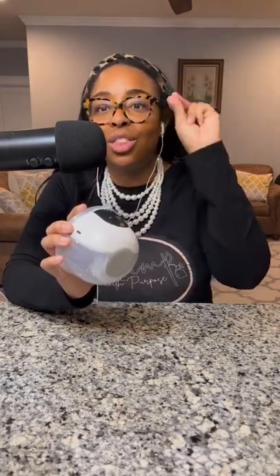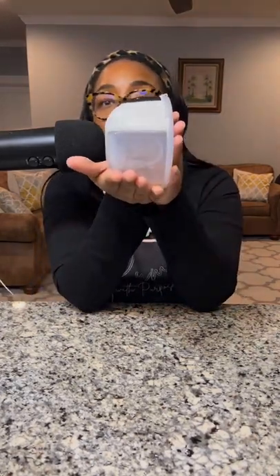This pump gives you three modes, including a combo mode — which is absolutely amazing to have in a wearable pump. Thinking through the ones I've used to date, I don't have that option elsewhere. So if you're looking for something where you don't have to switch from expression back to letdown mode, this has a combo mode that combines massage and expression together. Also notice it's one round hub — a smooth, rounded profile. You don't have an extra big piece sticking out from the top. That's the profile — that's what it looks like.